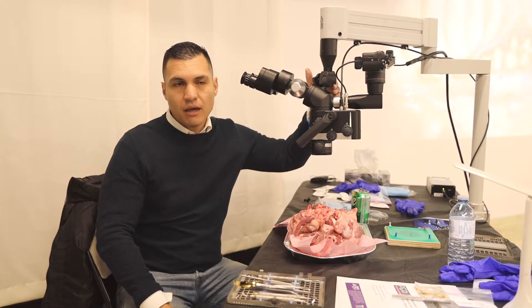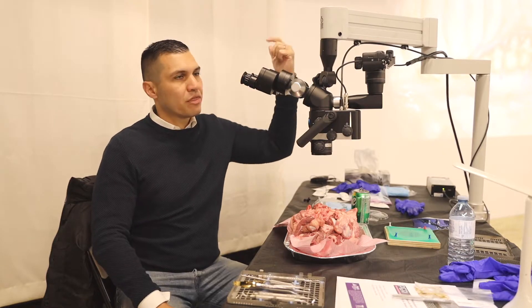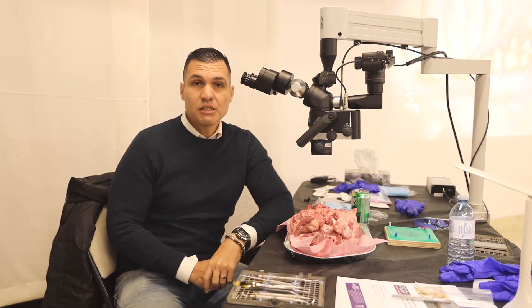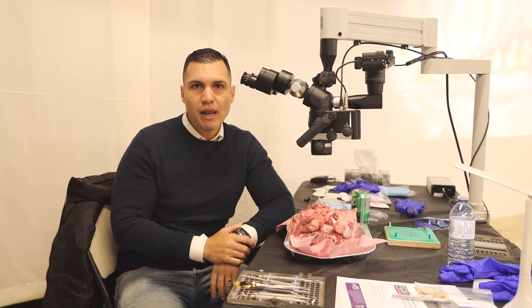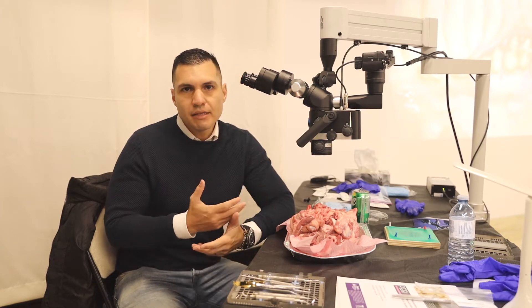The ball articulation won an award in German Design 2017, which is extraordinary. You can change the intensity of the light, the colors of the light, and it's amazing.